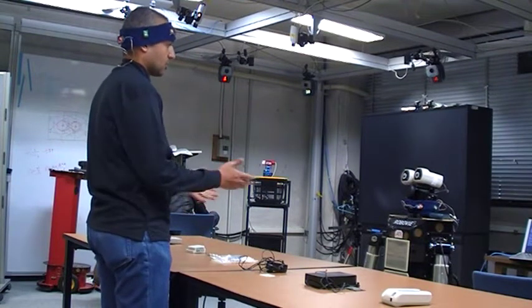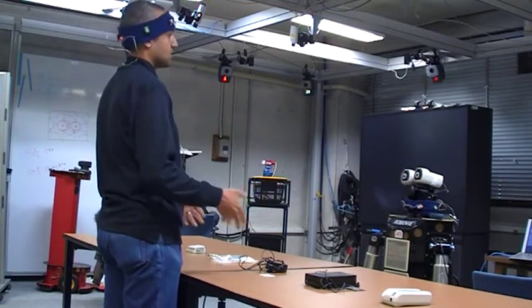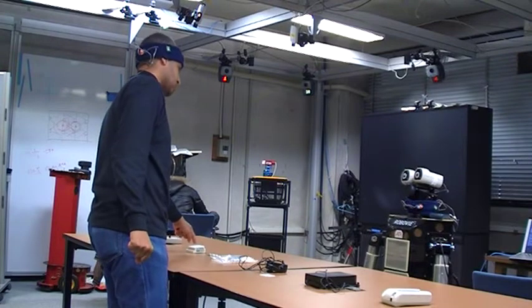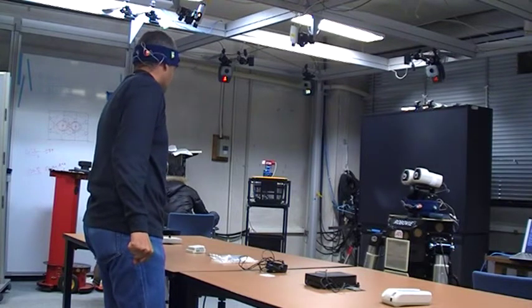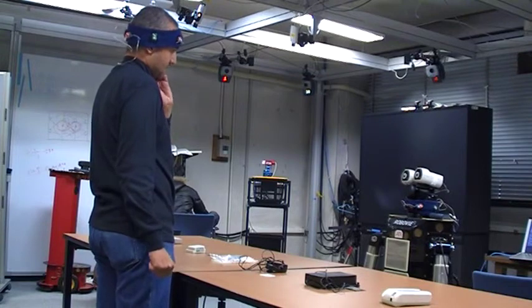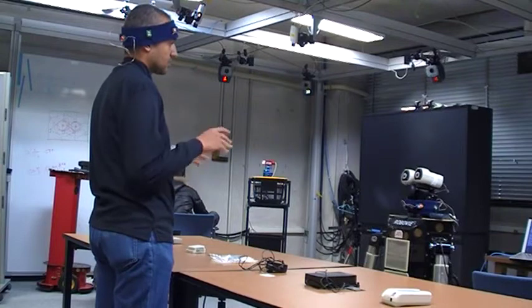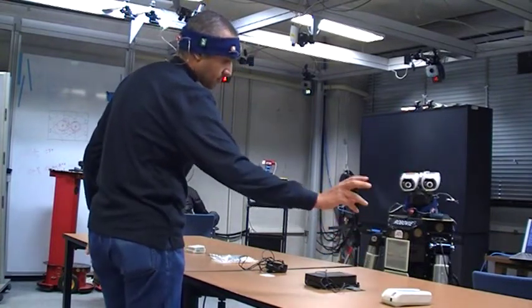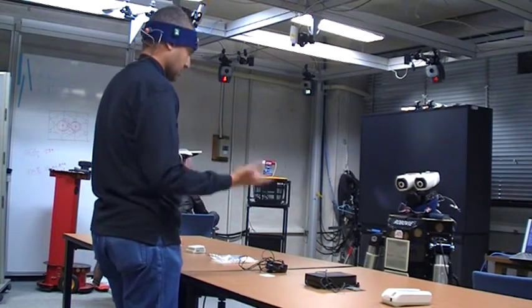So let's have a look at what we learned until now. We have the polymer device. We can connect many sensors. We have two examples: EEG, a part which we connected to measure the EEG, and the skin conductance part which we use to measure the skin conductance. And now I'll speak a little about the main device again. This main device can measure a lot of sensors, and it can save data for a very long time.